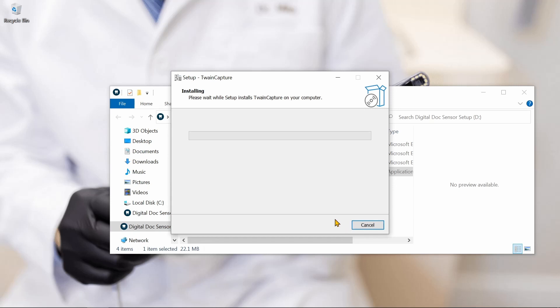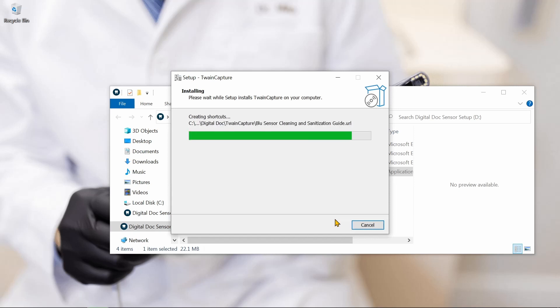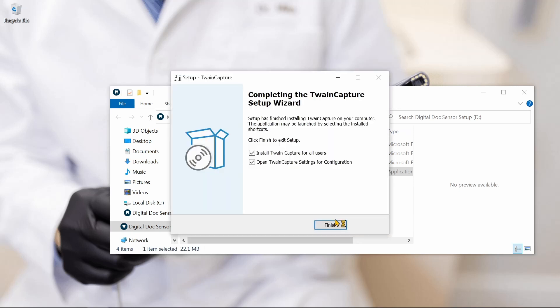Each individual sensor has its own specific installer which contains the calibration files needed to generate quality radiographic images.